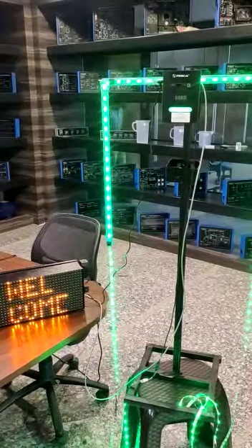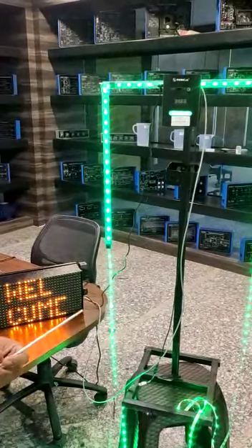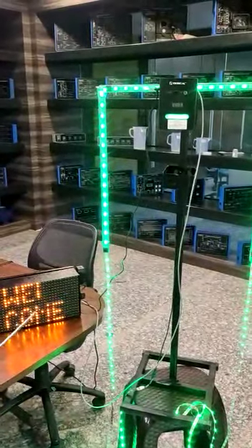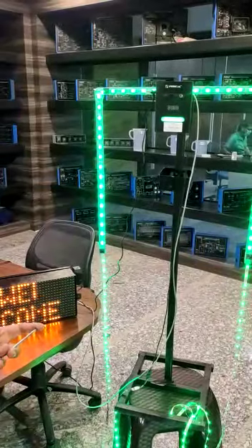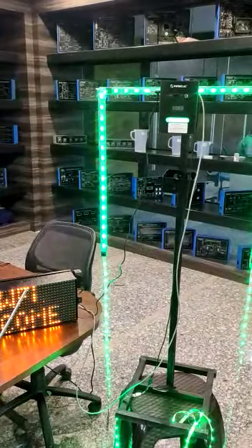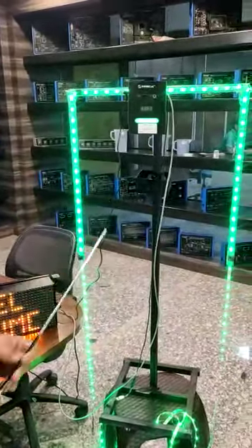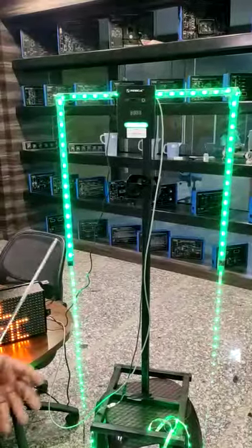Hello and welcome to Tesca Technologies Pvt Ltd. Today, as we know, there is a corona outbreak all over the world, and in this pandemic situation, Tesca Technologies introduces a brand new contactless infrared temperature meter which detects the temperature of the body.